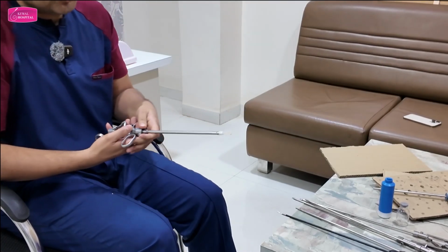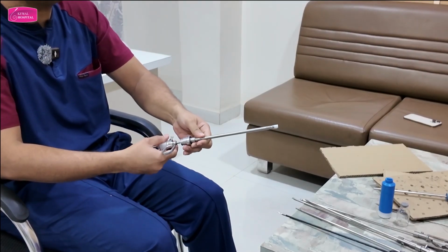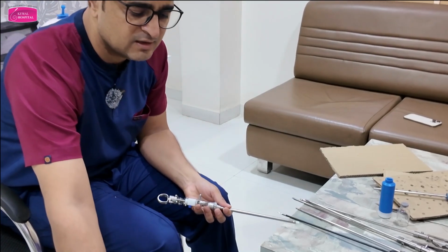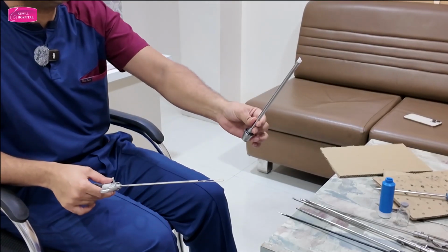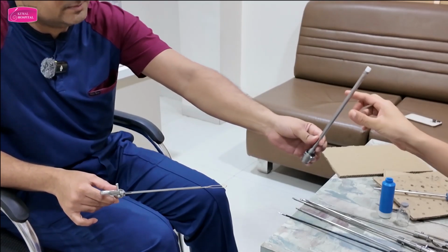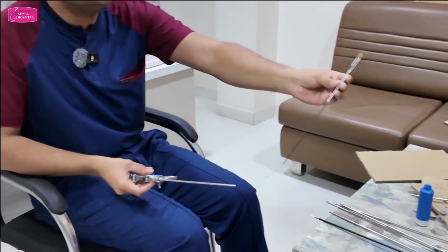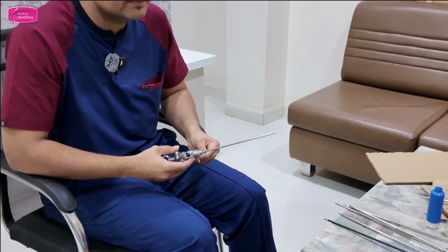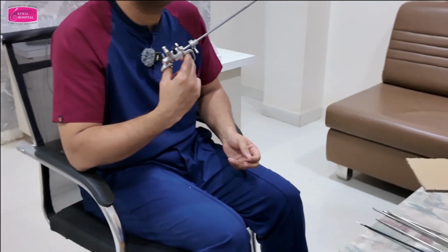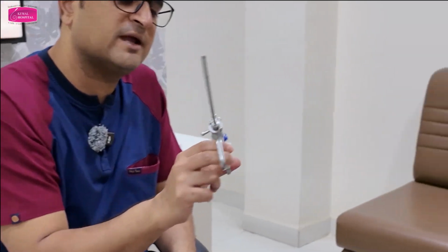Now see, every instrument will come with different locking mechanisms. Some are with pushing, some are rotating. So you have to understand your instruments, right? Here it is rotating. Here it was button type. This is the inner sheath. Again, same as that, with ceramic coating. Correct? Loop. This is the electrode. So, Collins knife. Okay? And this is the working element, finger operated. Understood the difference? Difference in size and difference in operating mechanism.